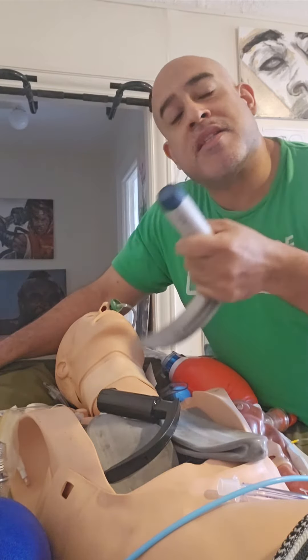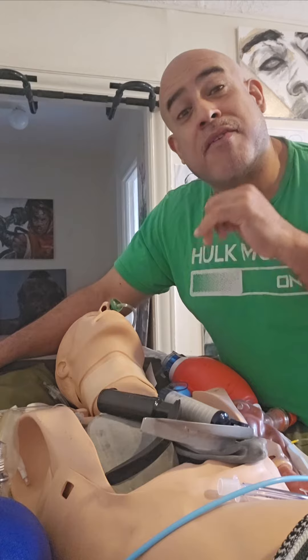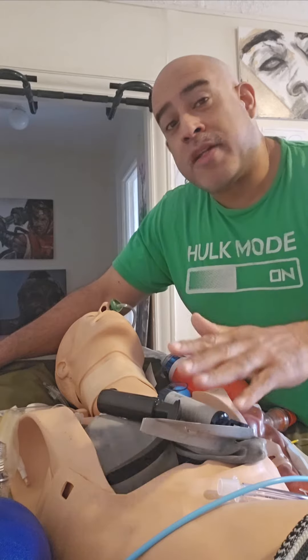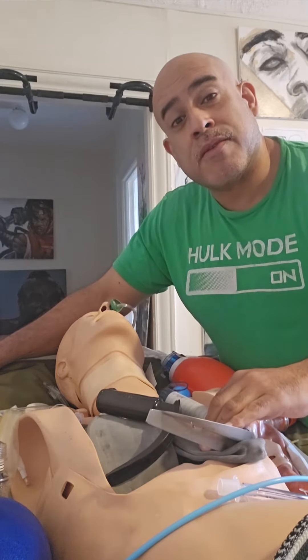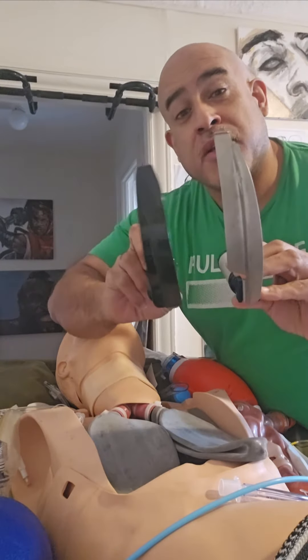They'd rather use a big blade and see if that blade will compensate for their weakness or their lack of skill and finesse — a.k.a. intubation talent. It's only in this finesse and belief, and you will do better using whichever blade you're best at.